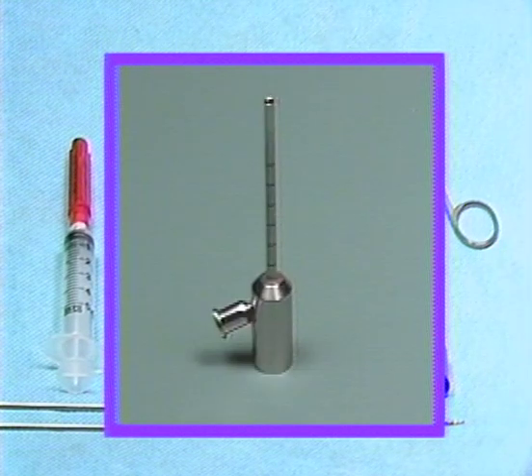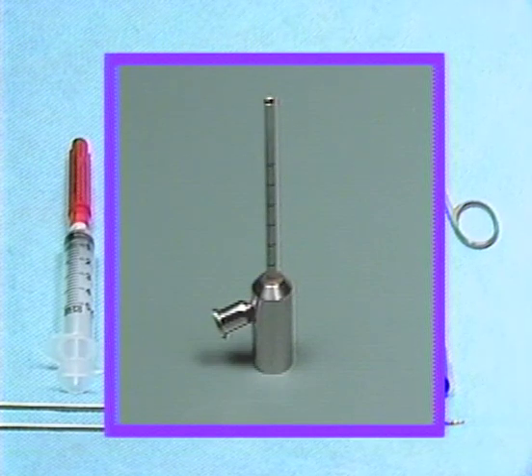The cannulas used to house the arthroscopic instruments as they are maneuvered around the joint are marked along their length in 5 millimeter increments, except for the distal 15 millimeters. The total length of the Dionics cannula is 45 millimeters from hub to tip. The average perpendicular distance from the skin surface to the middle of the posterior pouch of the superior joint space has been determined to be 25 millimeters, and this knowledge should help an operator gauge his position in the joint when visual landmarks are obscured. The cannula has a sidearm with a luer-type fitting, used as an attachment for the irrigating tubing on the scope cannula, and also allows for the egress of fluid from the joint through the second cannula.